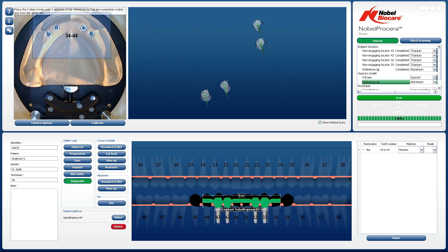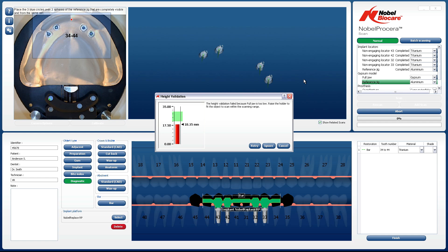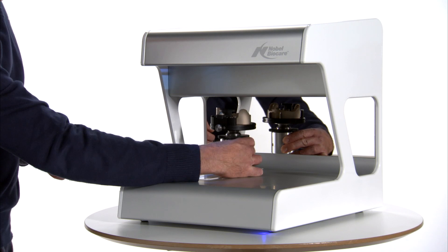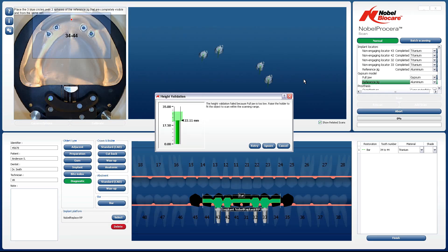Place the small circles over the spheres at either the top row or bottom row on the reference jig using the same process. If the spheres on the jig are not visible on the Camera View, gently push the table forward until they appear. Once all the scan windows are in position on the Camera View, left-click on Scan. A Height Validation box appears if the height of the object needs to be adjusted. Change the height of the holder until the indicator becomes green. It is OK to change the height since we have the reference spheres on the reference jig. Click on the RETRY button.